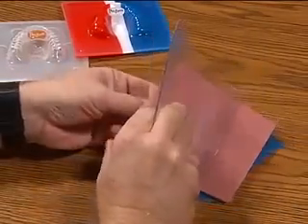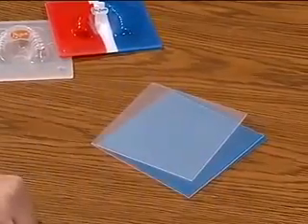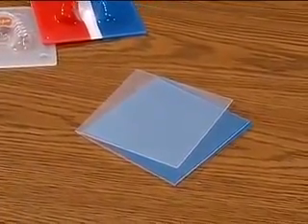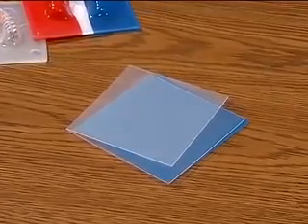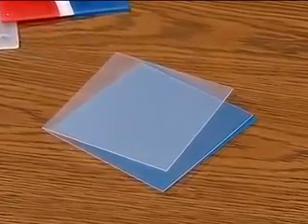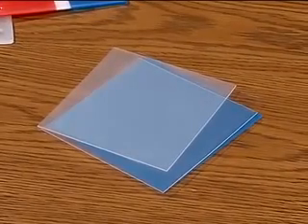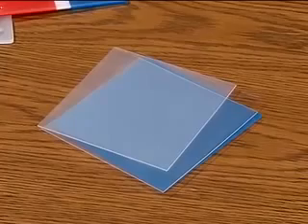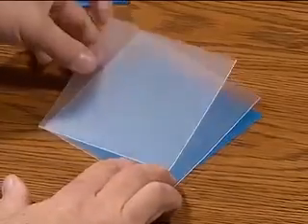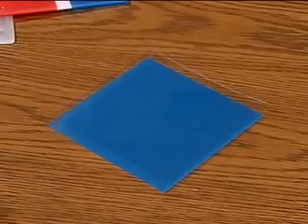We also have coping material, which is a material that does not stick to acrylic. It is preferable over splint material in that you can fill the intaglios of the coping material with resin. Once it's set up, it peels clean and doesn't stick to the acrylic at all.